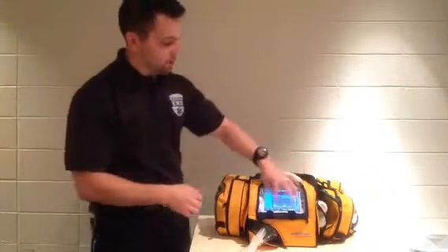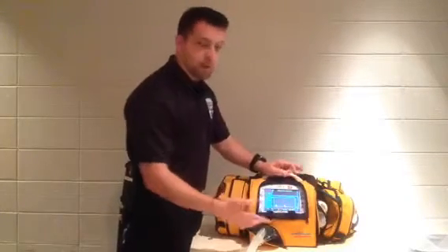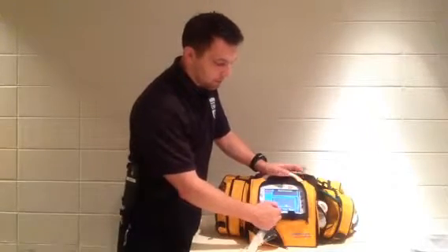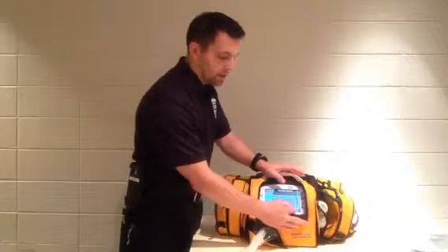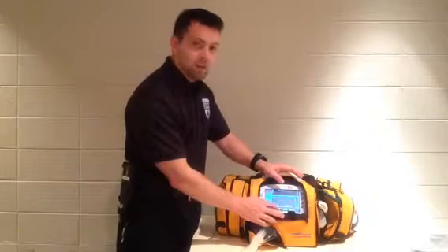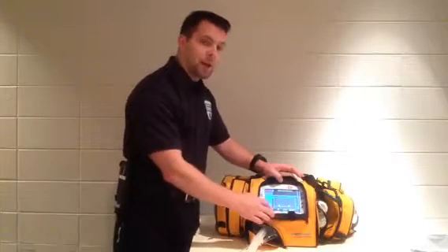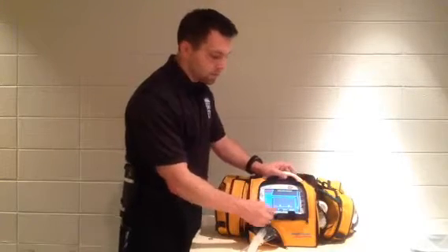Just speaking back to these, you've got 4 parameters on the bottom. You can change them, whatever you want to see while you're transporting. So right now it's got my PEEP, my mean airway pressure, my cylinder time, and my battery time. If I wanted to change that so that something else is showing, I just simply tap that and bring up all the options, hit that, hit accept, and now that is on my main screen. So of those 4 parameters, I can customize those.